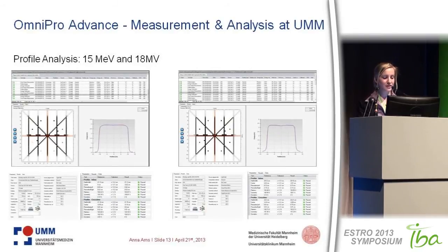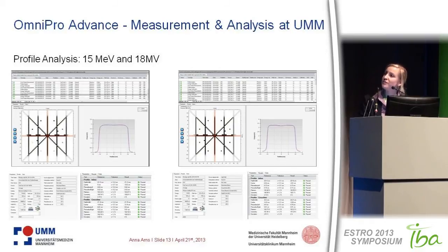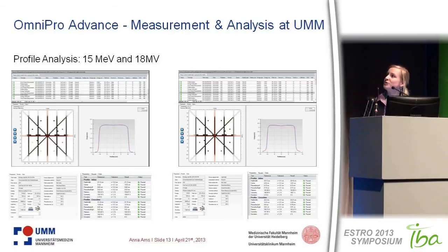Here is an example of the profile analysis interface, showing 15 MeV electrons and 18 MV photon beams. The interface is very easy and user-friendly. You can directly see the queue you opened and the profile result alongside your protocol references. You have tolerances defined, and if your measurement is within those tolerances compared to your reference, you will see a pass or fail — if everything is green, everything passed.